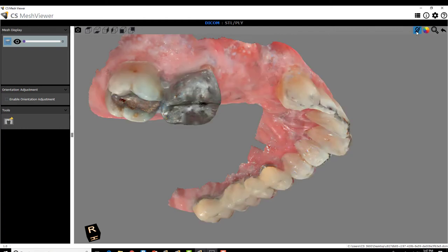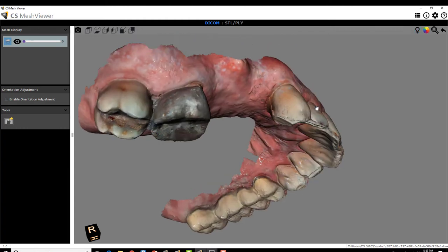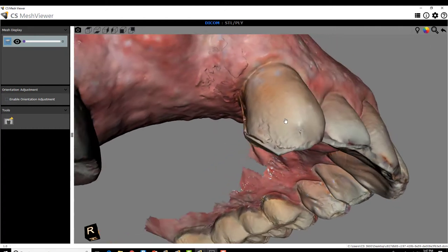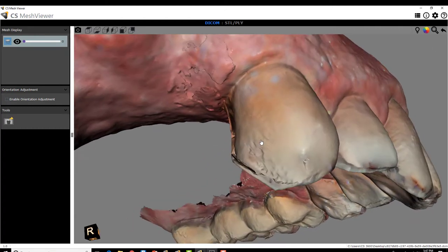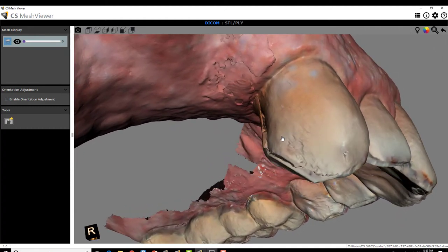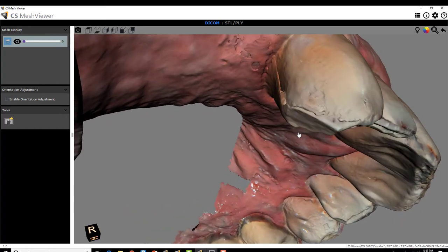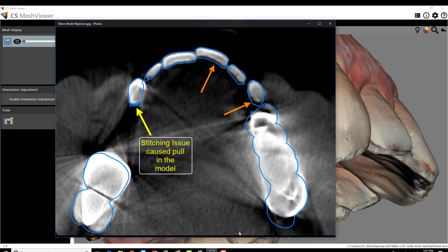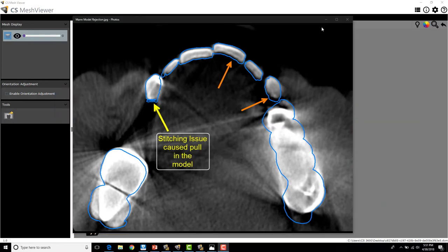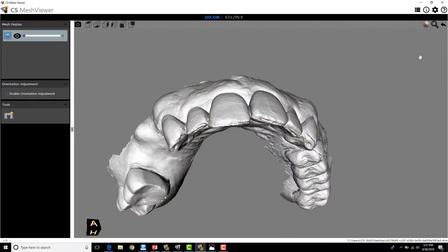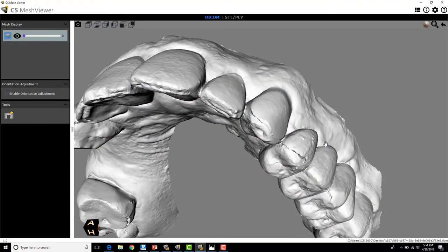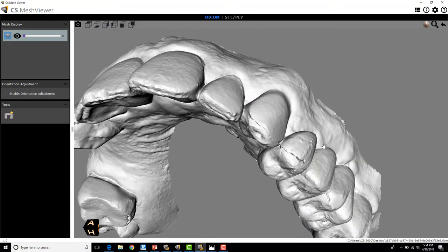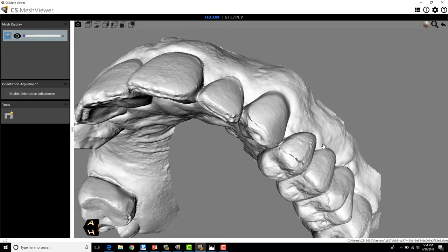So when I turn this contrasted view on and I zoom in, well now you can clearly see what the problem is and how that would affect the fit of the actual guide. And you can see it's exactly what they were saying and where they were saying the issue is. And you can see the same thing in monochrome too. So when I convert this to monochrome, I'm going to see the same errors as I saw in that contrasted view with the light switch.